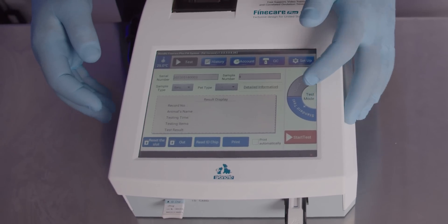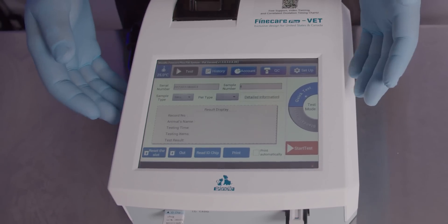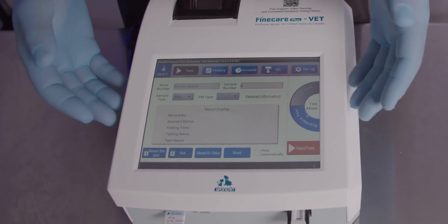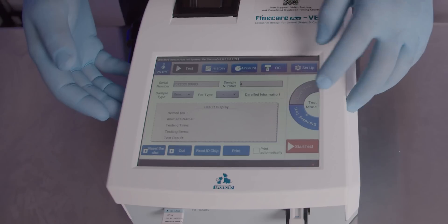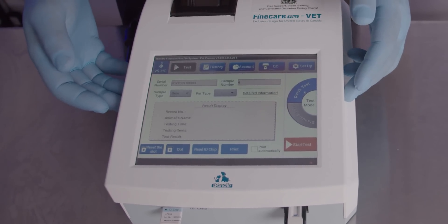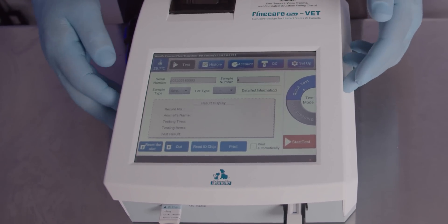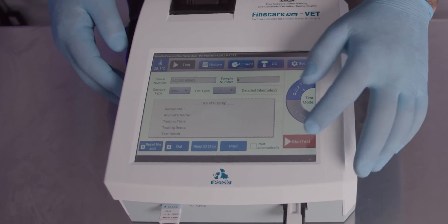We can either run a standard test or a quick test. A quick test will run the test immediately. A standard test will run an automated 15 minute timer for you. Assuming that you've incubated your test outside of the system using the included timer and trays, you can then run a quick test.